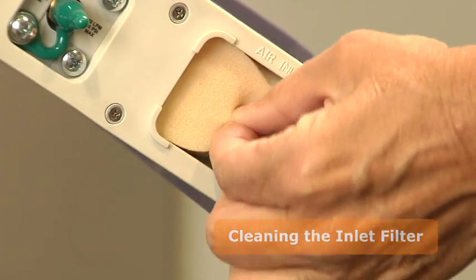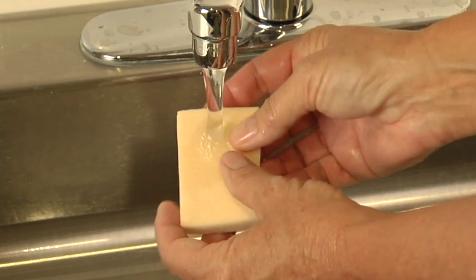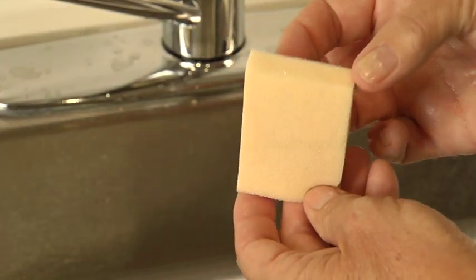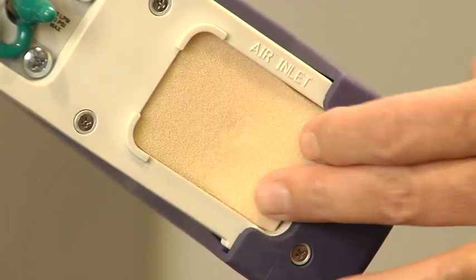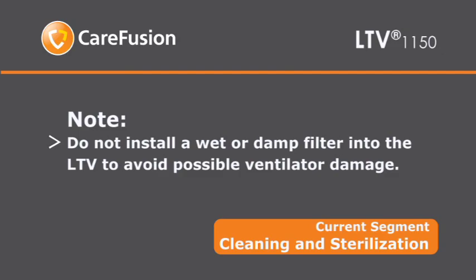Remove the inlet filter by gently pinching the foam filter and pulling it out. Hand wash the filter using warm water and a mild liquid detergent. Rinse with warm water. Inspect the filter and replace it with a new filter if necessary. Allow the filter to air dry before reinstalling it. Do not install a wet or damp filter into the ventilator. This could damage the ventilator.